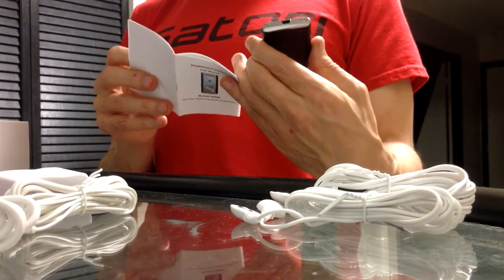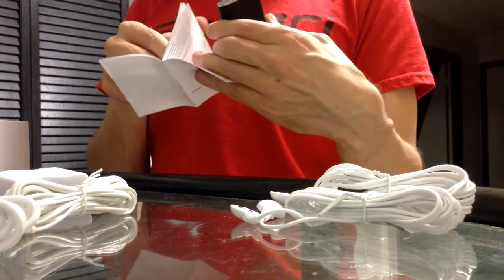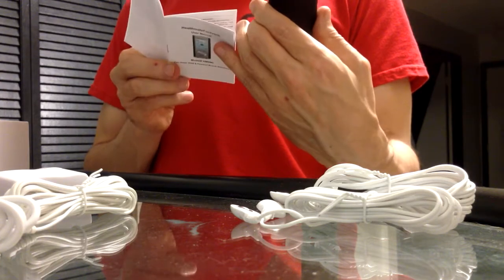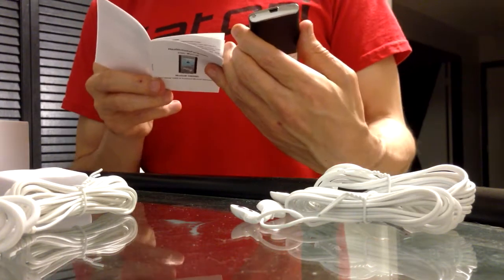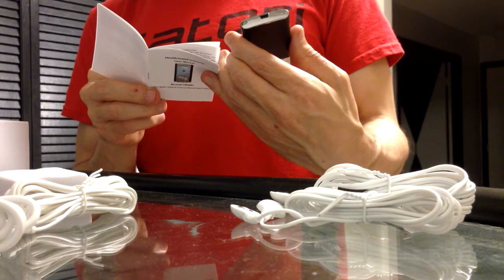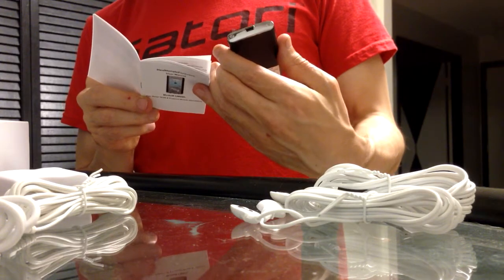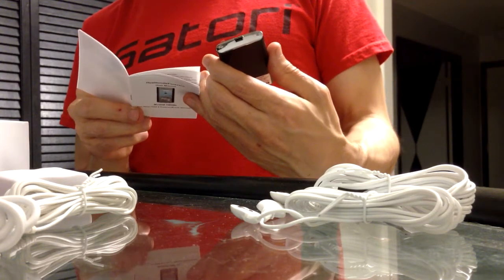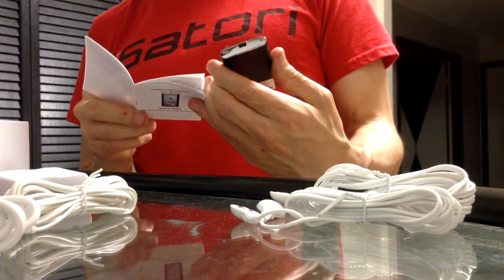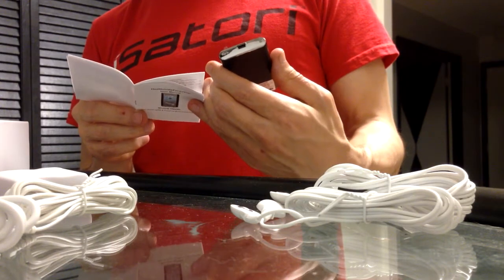It says please see page 13. Okay, here we go! The first one is hands bumping up and down, which is like a hand-on-body massage treatment. The second one's the acupuncture. Then there's one for feet, then there's a gentle tapping, legs, cupping, back, and random. I think I'm going to try either the acupuncture or the back one.